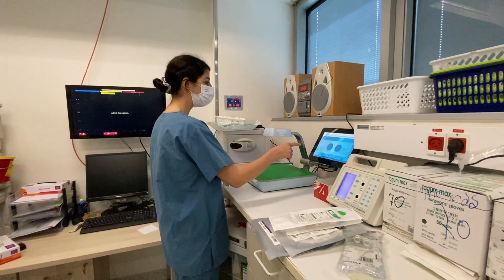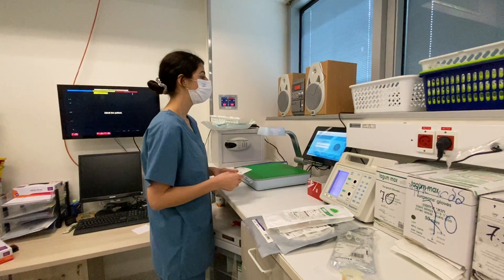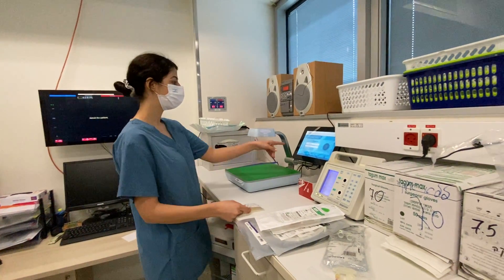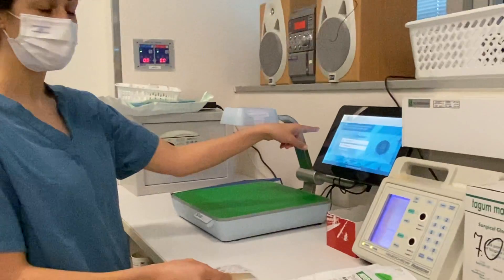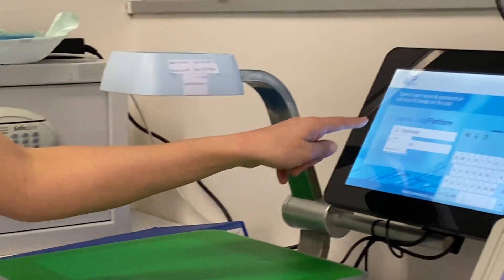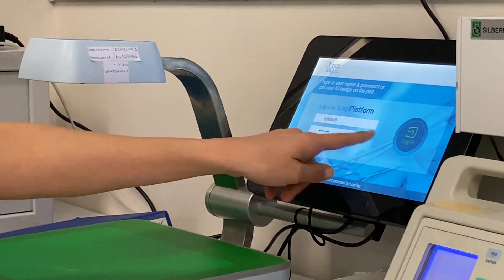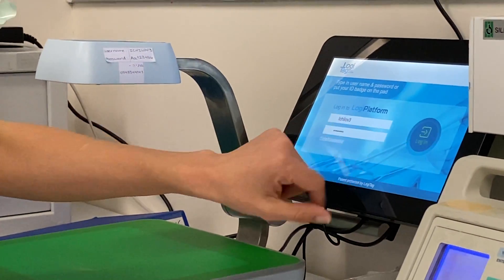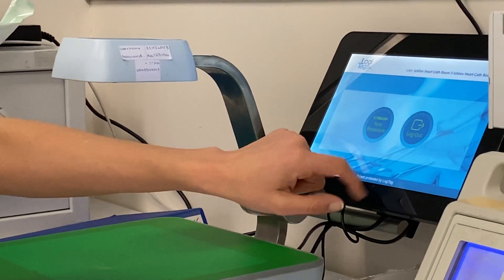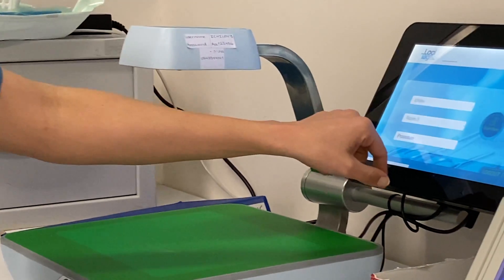First things first, you have your username and password — you enter it into the system, it's already saved. Click login. Then click 'New Procedure' to start a new procedure.